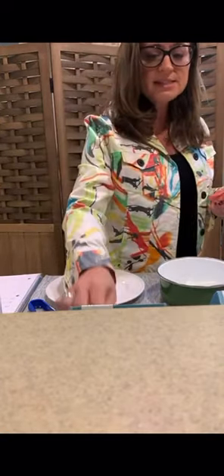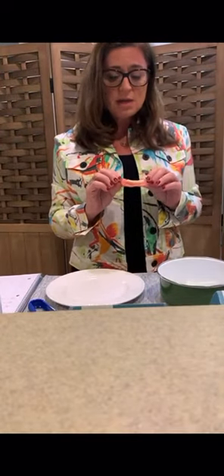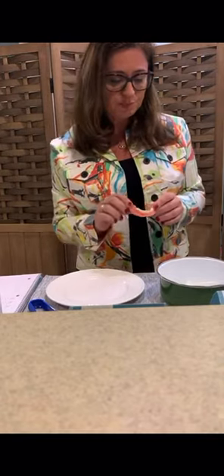So what is it? Easy Denture is a product that is currently distributed solely by Banco Dental. If you find this interesting and you'd like to know more about it or place an order, please contact your friendly Banco Dental representative. Easy Denture comes in two arches, the lower and the upper.